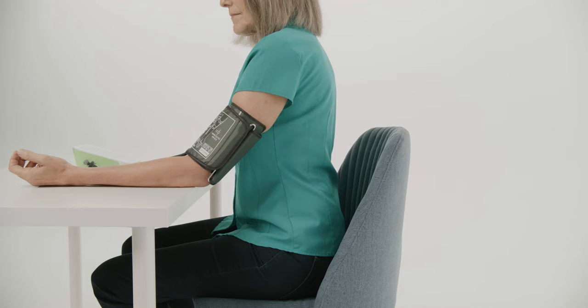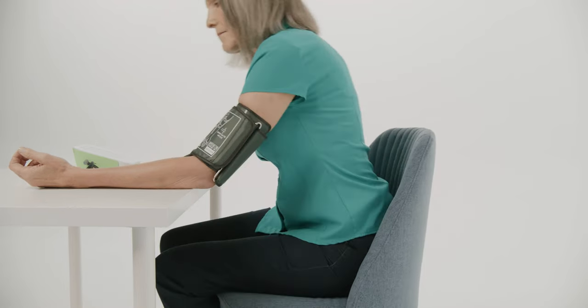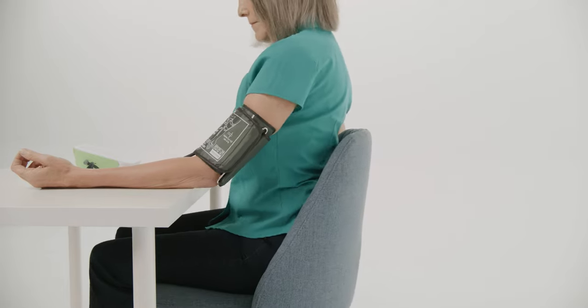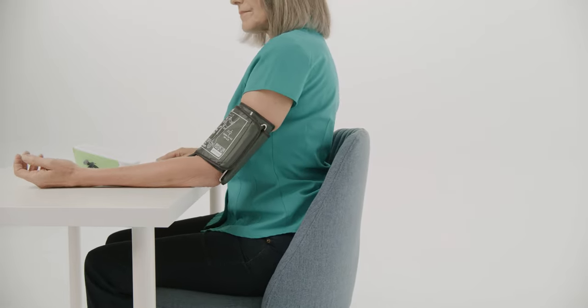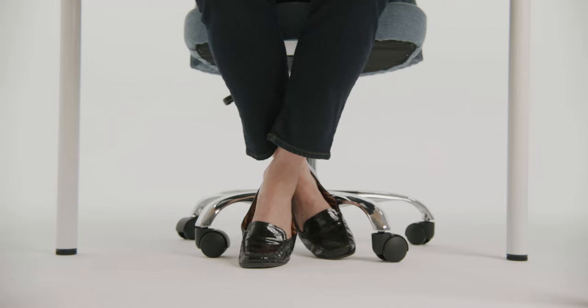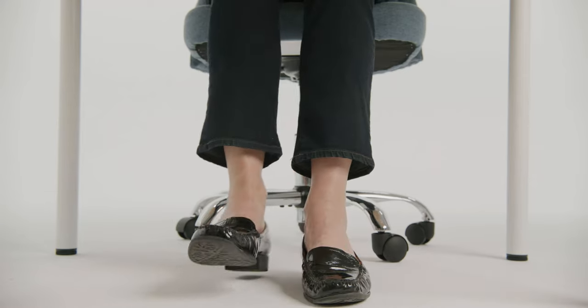It's important to maintain good posture when you're about to take a reading. Make sure your chair has decent back support and position yourself against it so you can sit upright. It's also important to remember to keep your feet flat on the floor, not crossed or hanging off the chair.